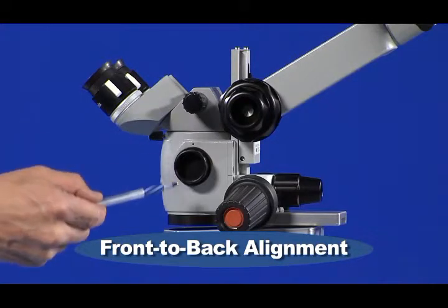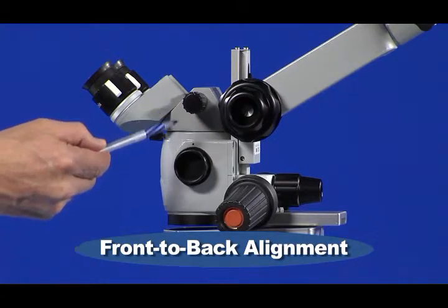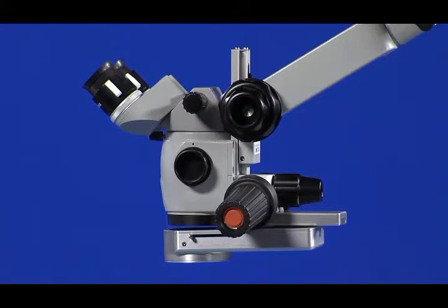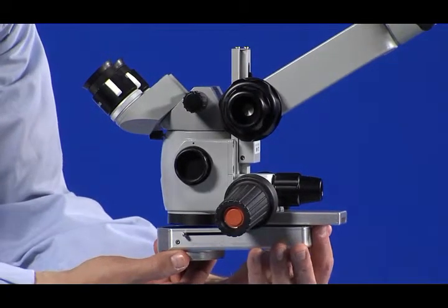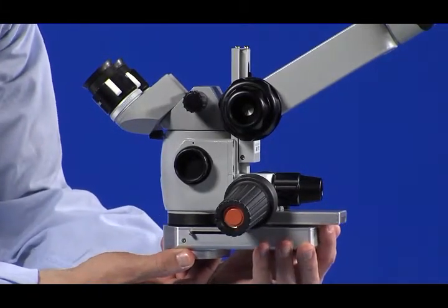Finally, you will align the CLA to the microscope's optical axis. The first step in aligning the CLA to the microscope is setting the front-to-back location.